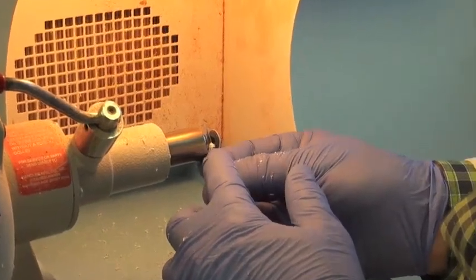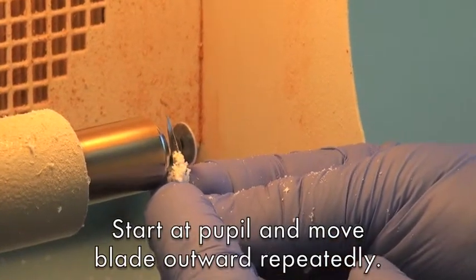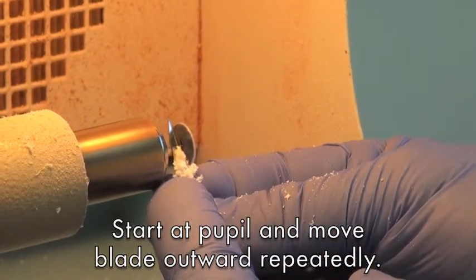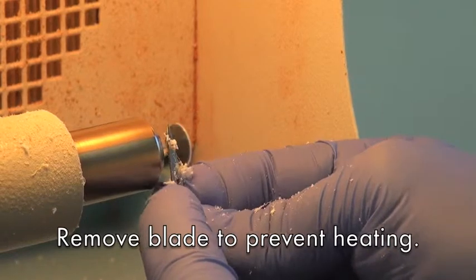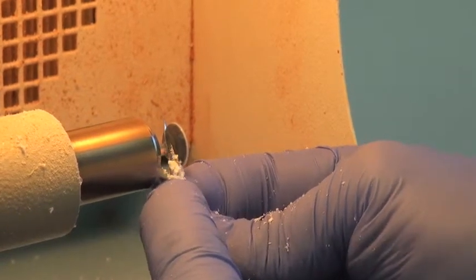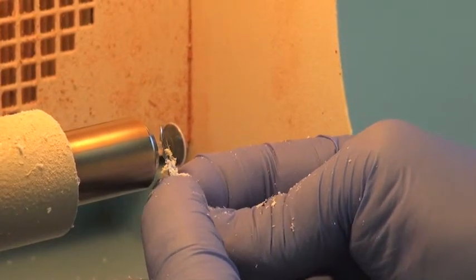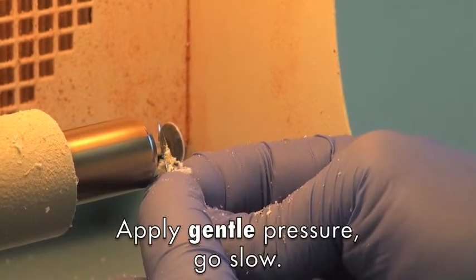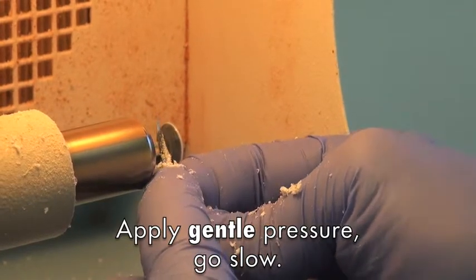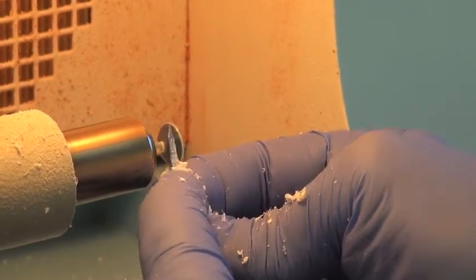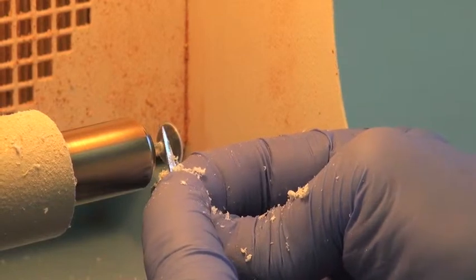So I take the blade and I start right over the pupil and you'll start to see the shavings come off. Sometimes I'll take the blade off so it doesn't heat itself and break the stem. And you want to be very gentle with the pressure that you're putting on here. The more pressure you're putting on there, the more stress you're putting right at the stem and the more likely it is to break. The slower you take this, the less heat is generated and the more likely you are to come out with a perfectly finished image.